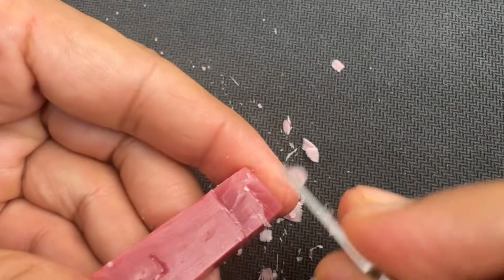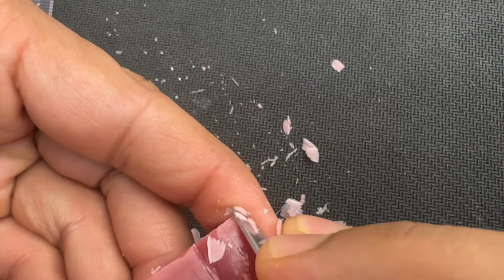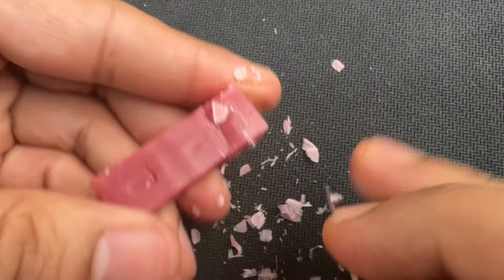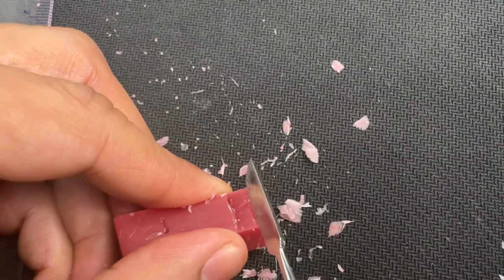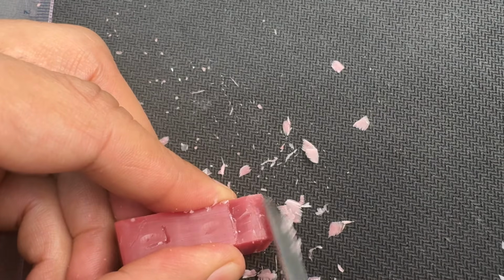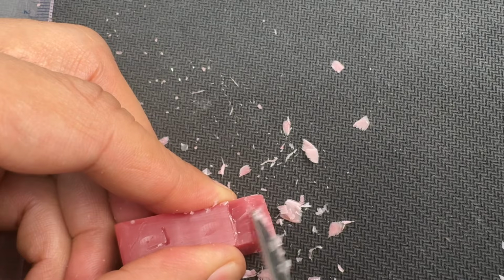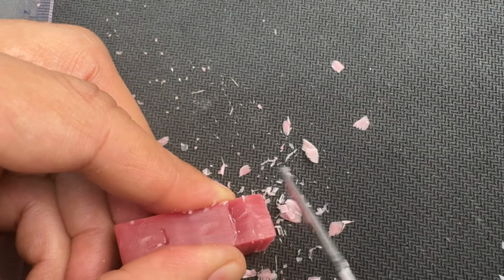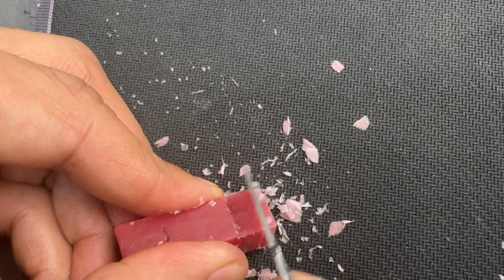So just remove the wax and make sure you have this crest of curvature established. So I'm making sure that it is in the middle of the middle 1/3 for the lingual side. It is middle of the middle 1/3, whereas for the buccal side it was in the cervical area.